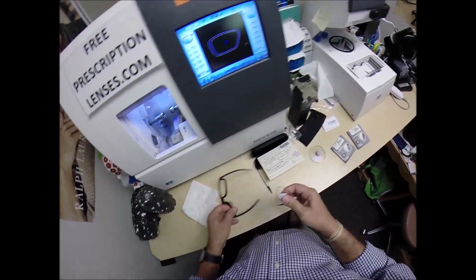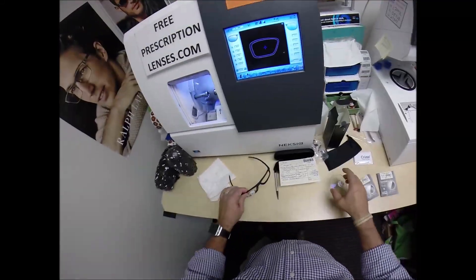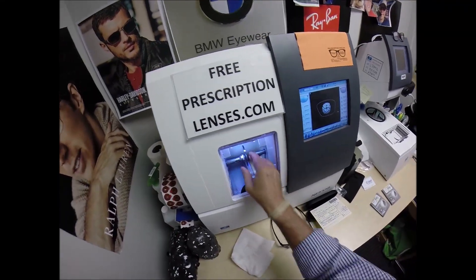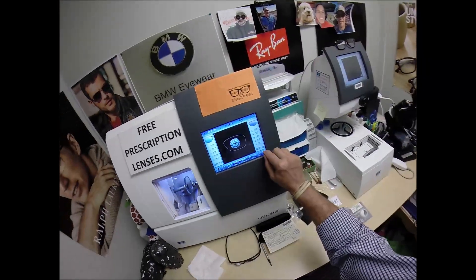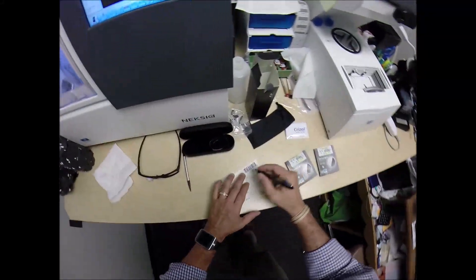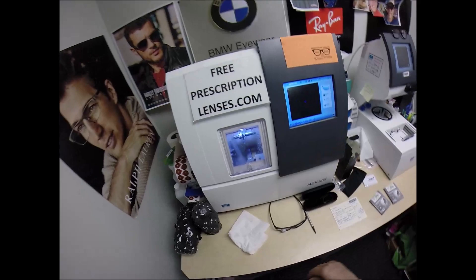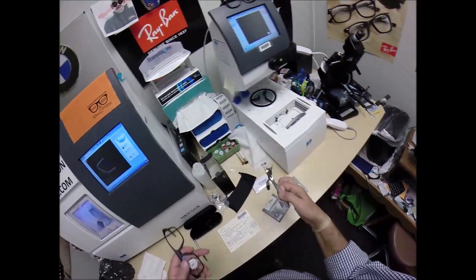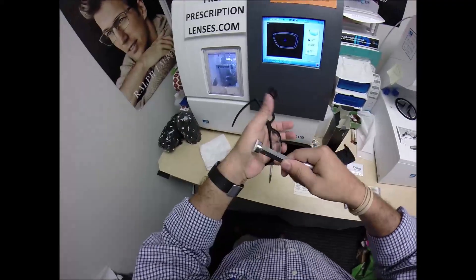Dry everything off. Tuck it in at the outside corner, press down at the nose — it snaps in there easily. Flip that over to L, press it on there firmly. Place the magnet into the Chuck — the Charles, the Chucky baby, or as I like to call it, the David. Hit the green arrow at the start. I want to mark that I took your right lens down minus 0.10 — one-tenth of a millimeter. The sticker is no longer needed. Add that to my sticker collection.